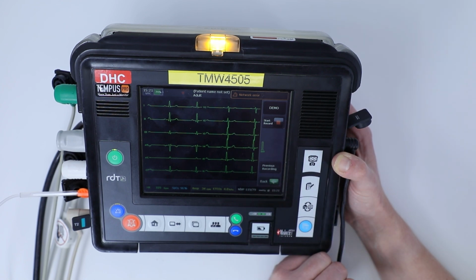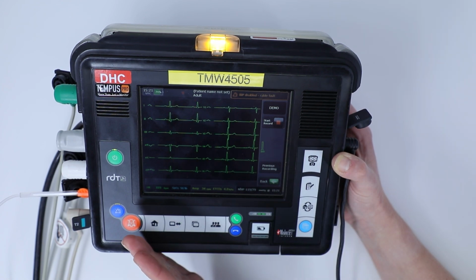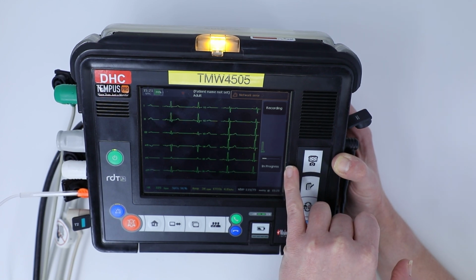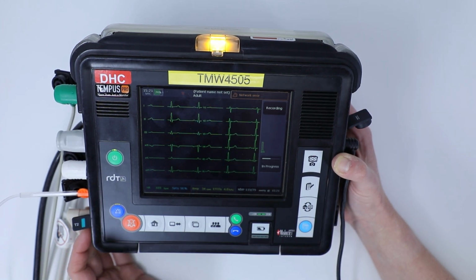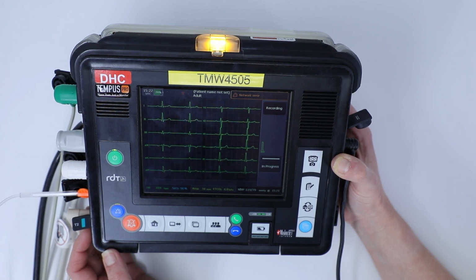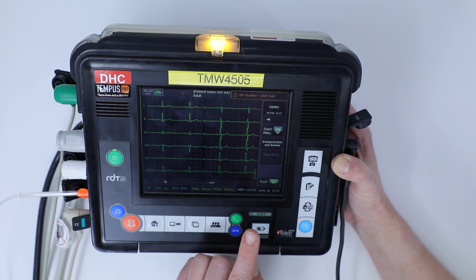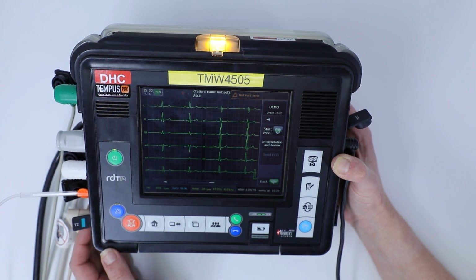And we can also start records. We can do screenshots or we can record. So I'm going to click that, and it's going to come up with a timing bar on the right hand side where it's demonstrating that the recording is in progress. Once that's complete, it's come up with a snapshot there, and it's going to save that within your summary record of care or your SROC.